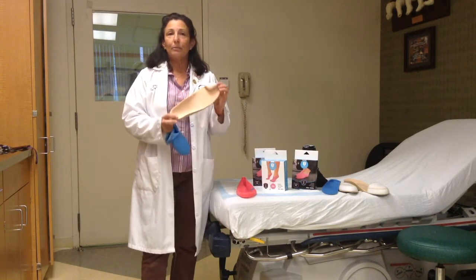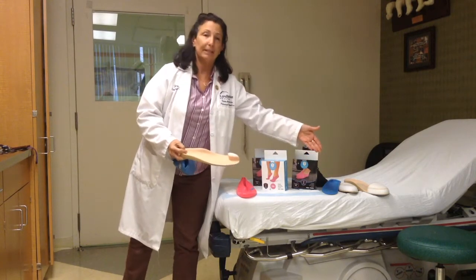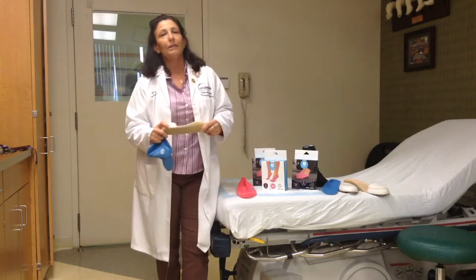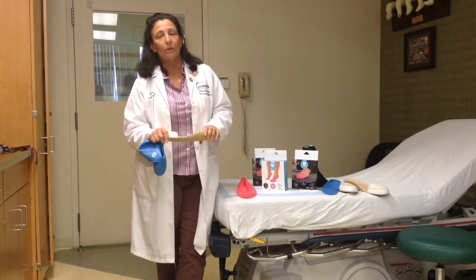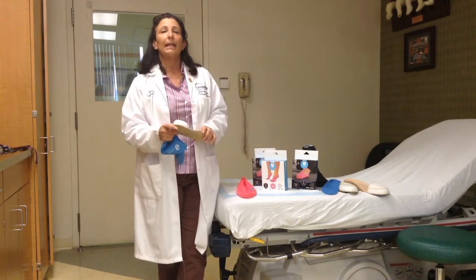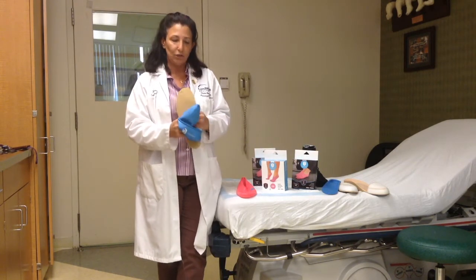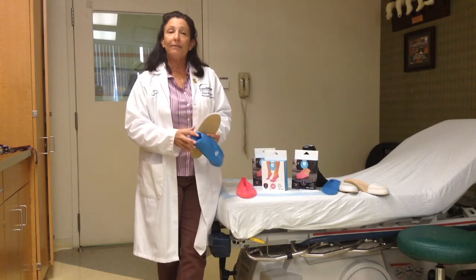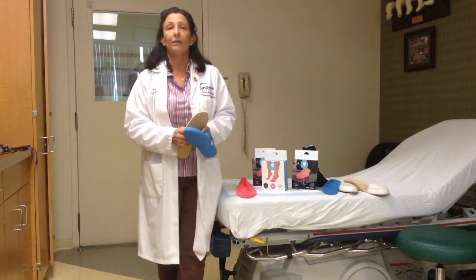This is a custom toe filler, as well as some of these others that I've put out here as an example. As we all know, it's very important for patients who have custom orthotics to wear them for much of the day. However, when you come home, you want to get out of your shoes and have a little bit more air circulation and just a more relaxed feeling. The Jellyfeet provides a direct cover over the orthotic.